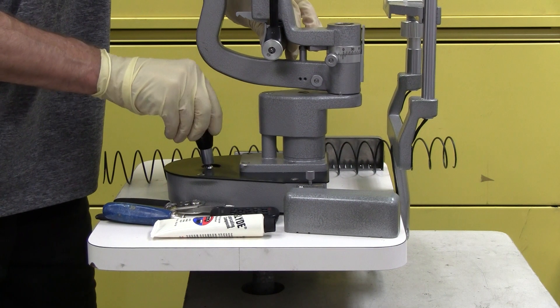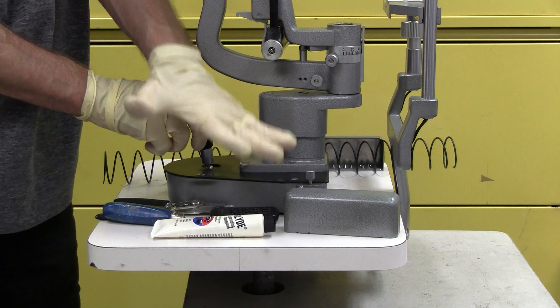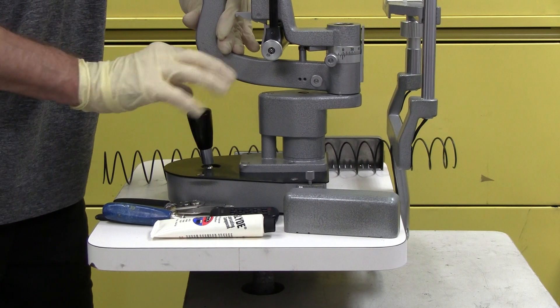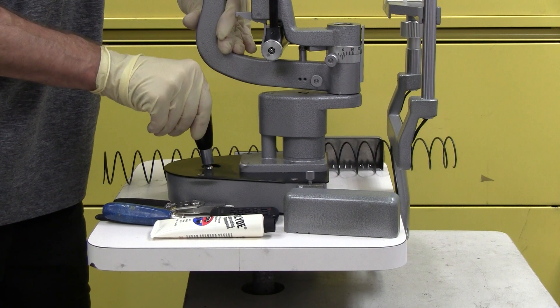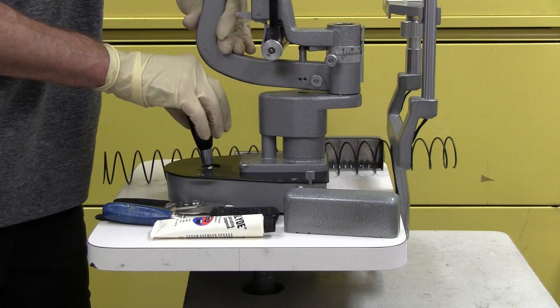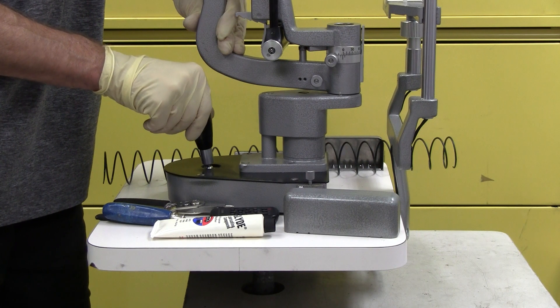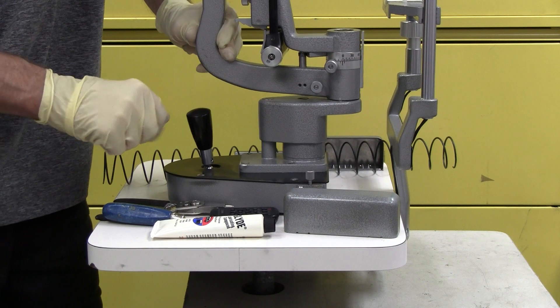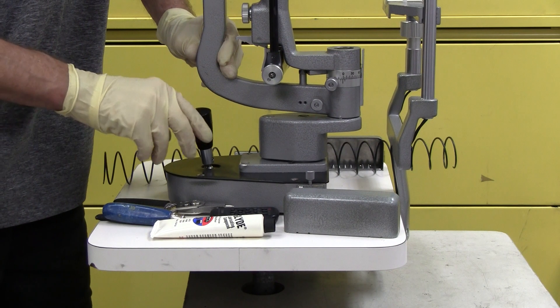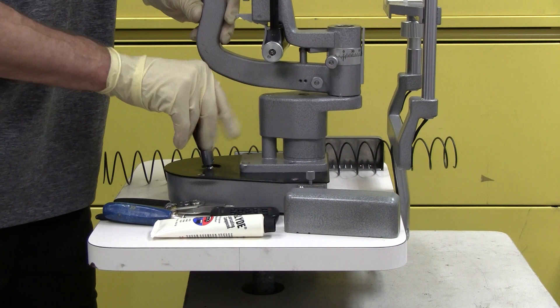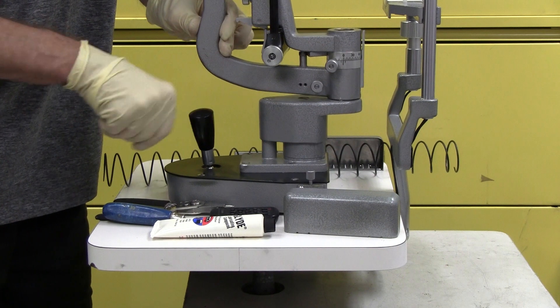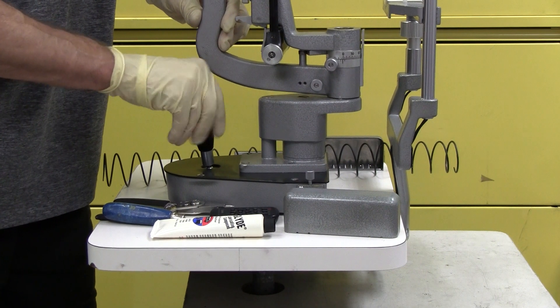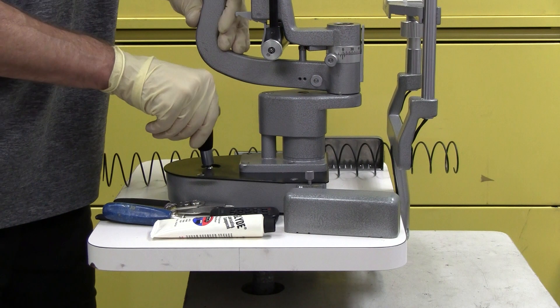I'm starting to go down. I'm pushing down with this hand and just starting to turn my joystick with this hand and then see what happens. Not supposed to do that.